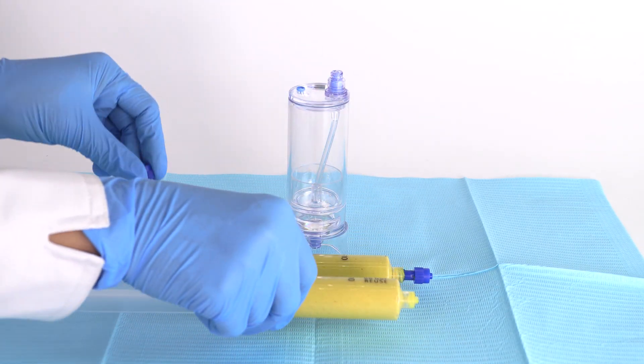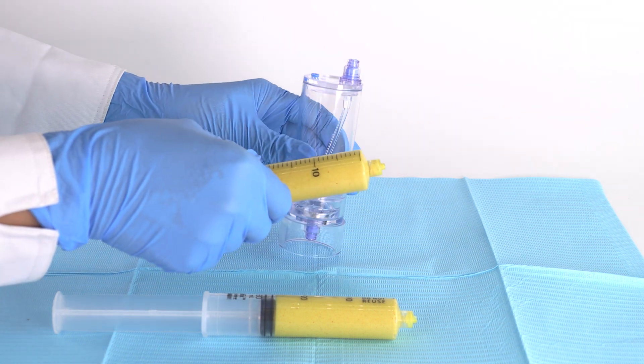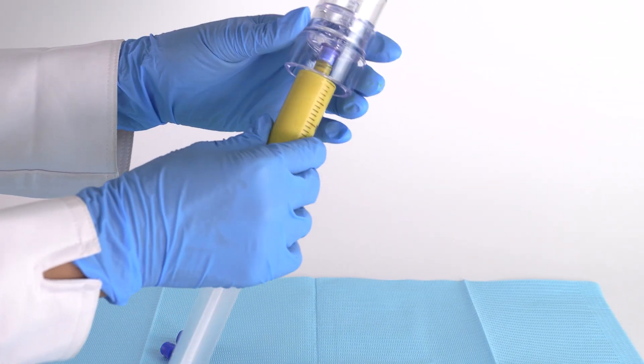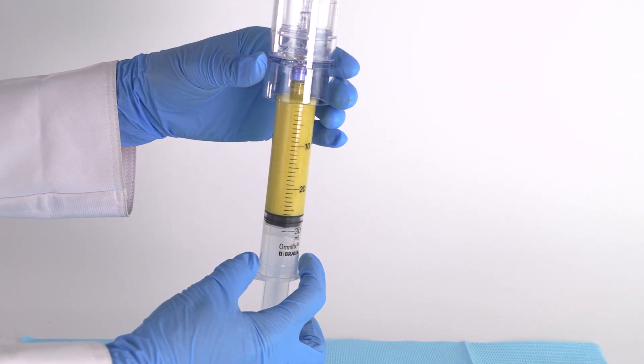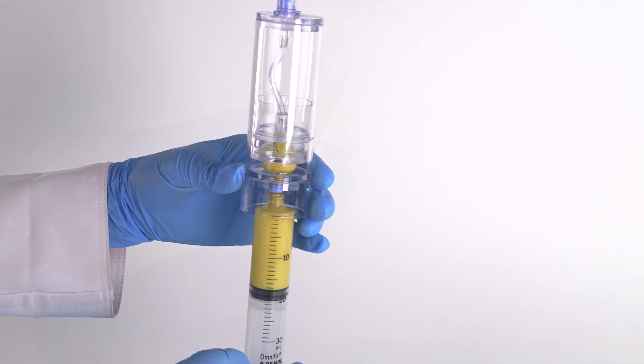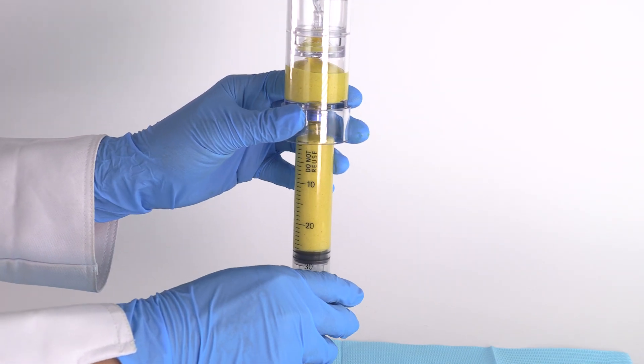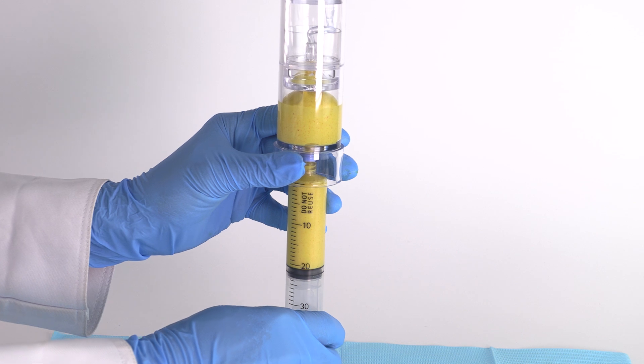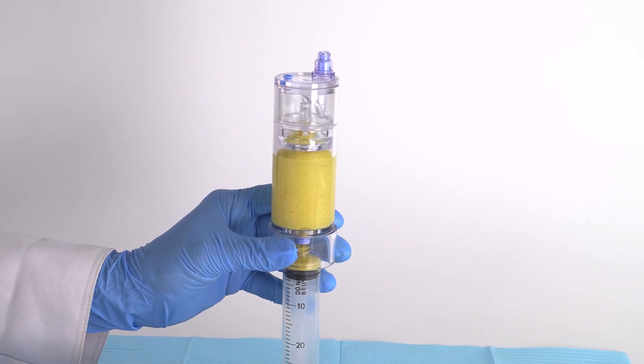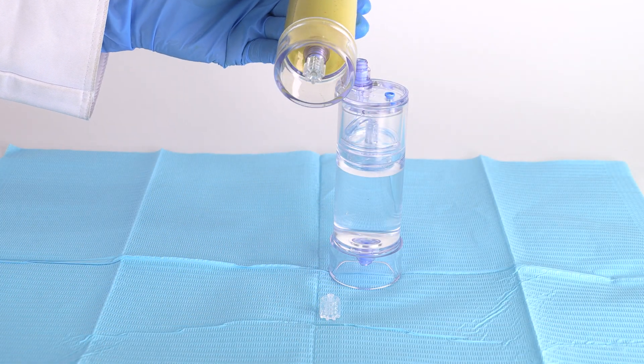After collection, inject the collected adipose through the bottom needleless valve port. Then place the clear cap on the bottom port.